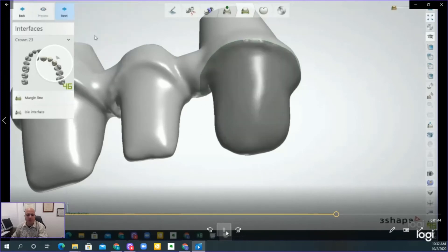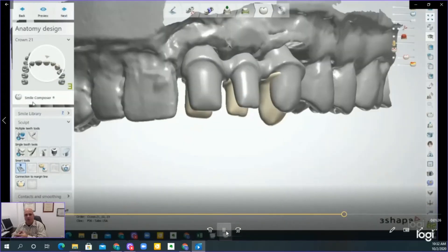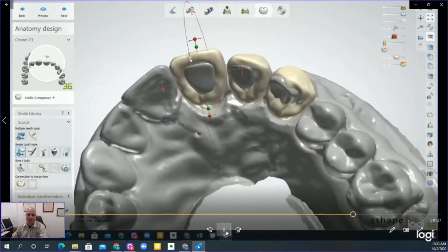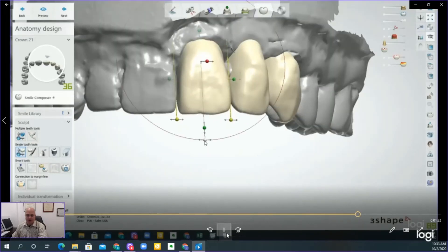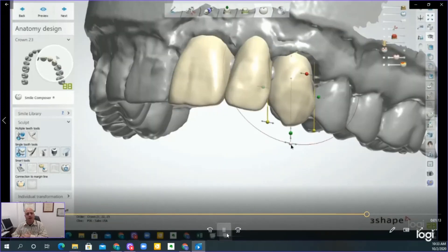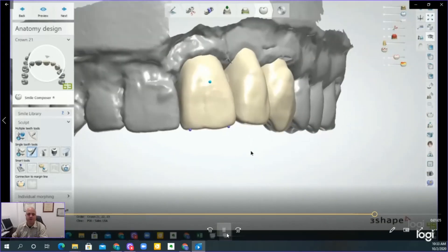As you can see, it is very easy. When it comes to margins, you want accurate margins, but if it's not perfectly dead-on, the composite will fill in from underneath. It's composite material with fiberglass — different from a natural tooth — so the cement will fill in the areas if needed. You'll see shortly, when we attach it to the margin we've associated, everything from the margin down is going to be overlaid with Gradia or some kind of composite annex. There are other composites you can use on it as well.